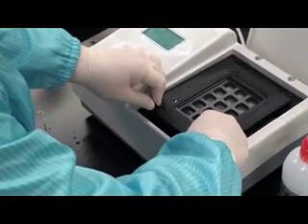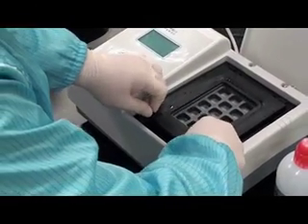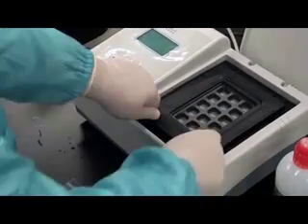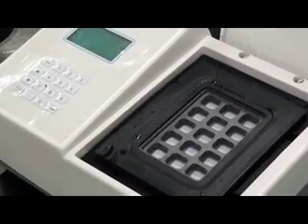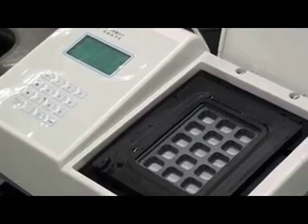Finally, add the fixing cover. The fixing cover could be locked by turning the knobs located on the bottom left and right hand corner.